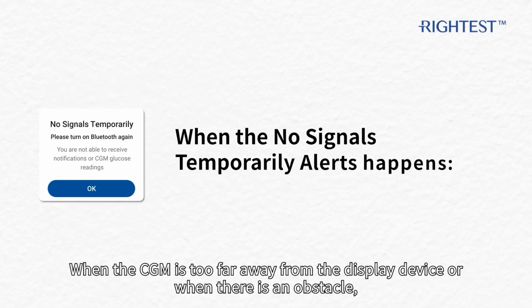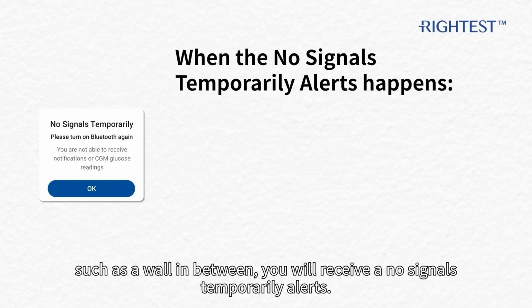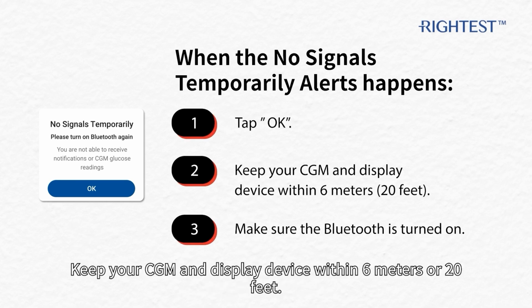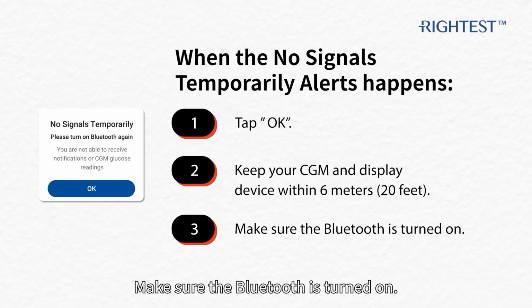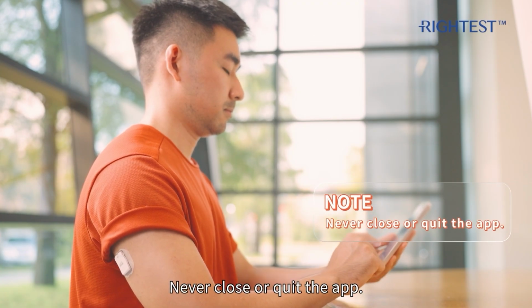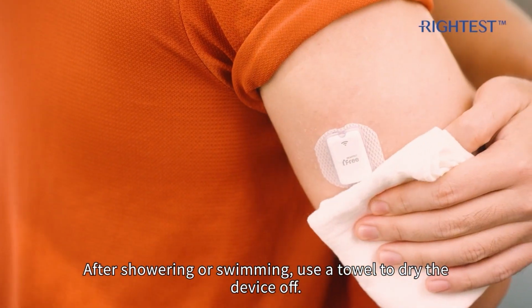When the CGM is too far away from the display device or when there is an obstacle, such as a wall in between, you will receive a no signals temporarily alerts. Keep your CGM and display device within 6 meters or 20 feet. Make sure the Bluetooth is turned on. The CGM app must always be running in the background. Never close or quit the app. After showering or swimming, use a towel to dry the device off.